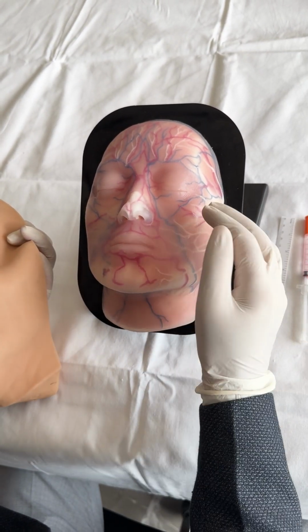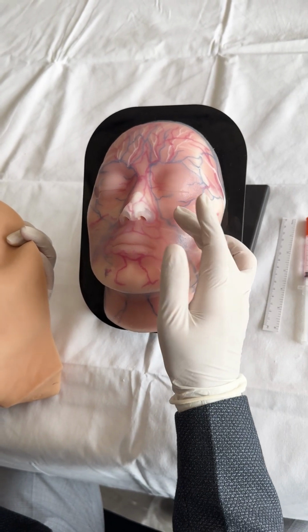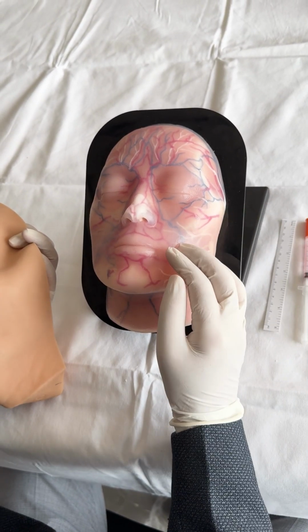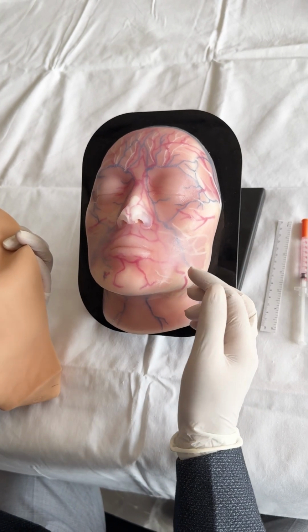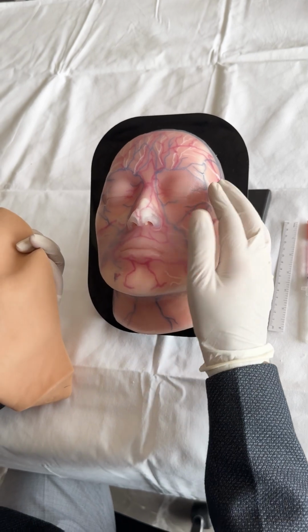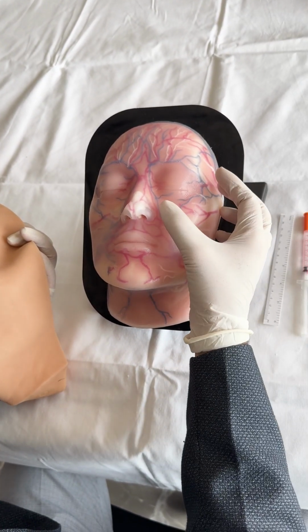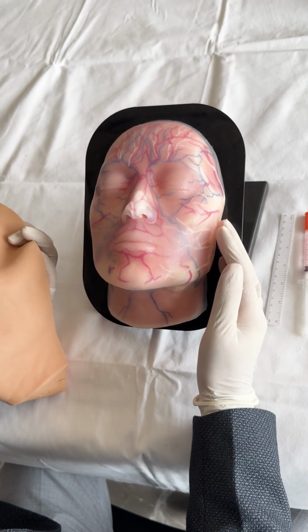This will give the practitioner an appropriate idea about how far he/she is from the vascular supply, and they can avoid such kind of vascular complications which are very commonly seen, especially with the use of fillers. It also gives you an opportunity to study the various anatomical landmarks that are usually seen on a human's face.